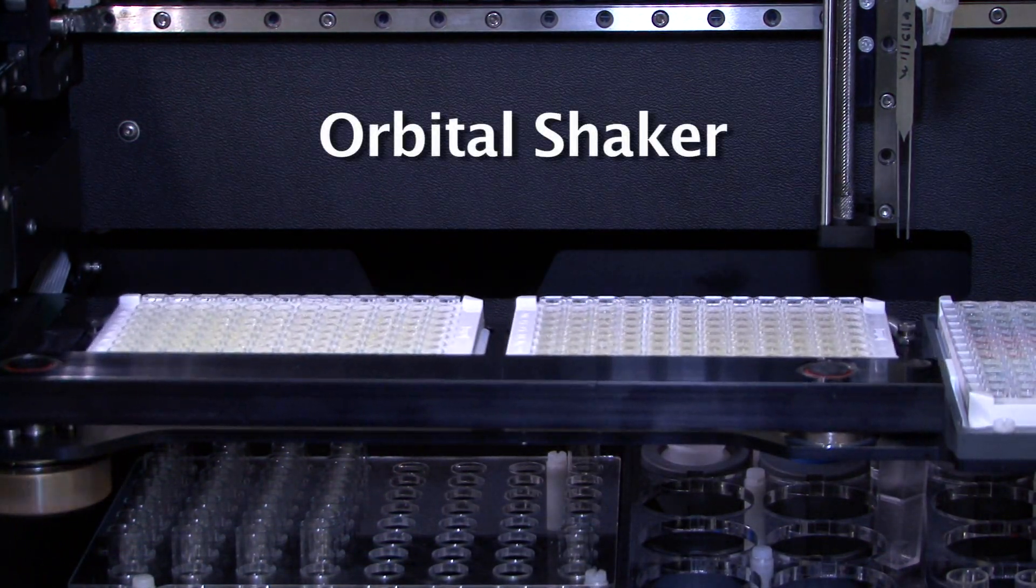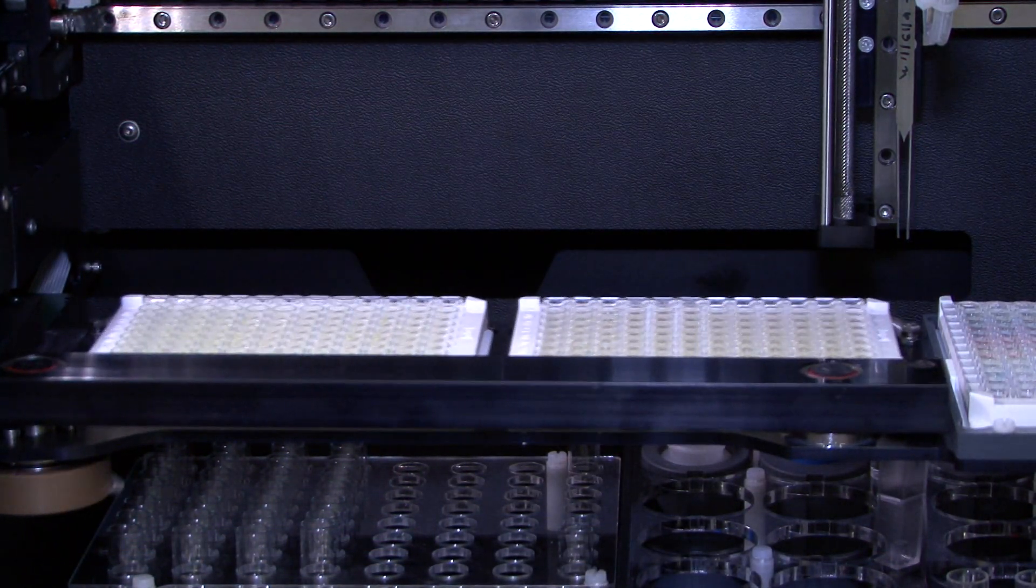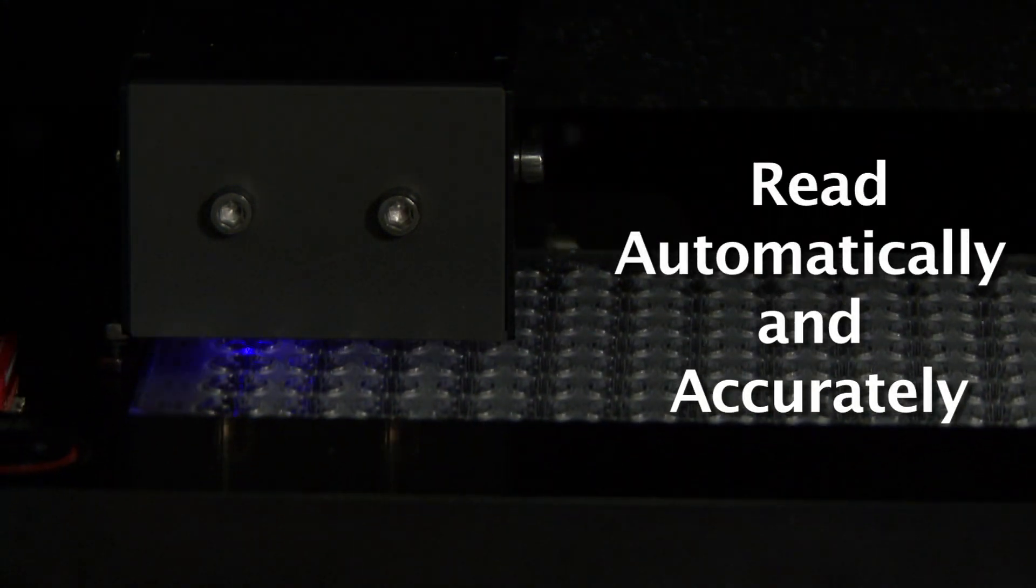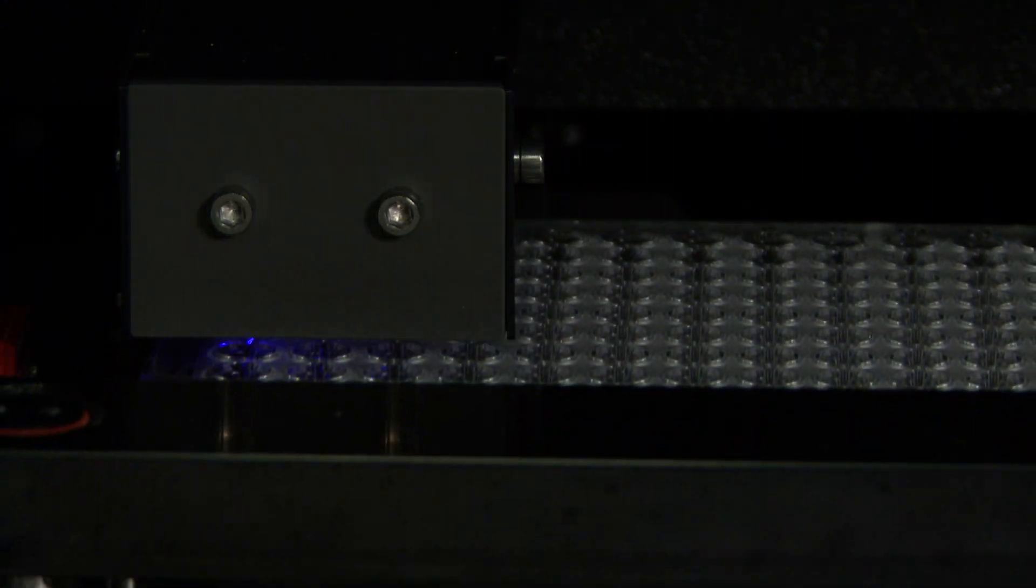Reagents can be dispensed while the orbital shaker is in motion. Read sample results automatically and accurately using the patented built-in LED spectrophotometer or chemiluminescence reader.